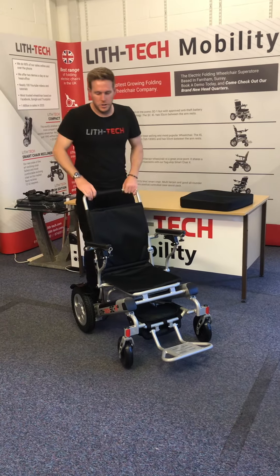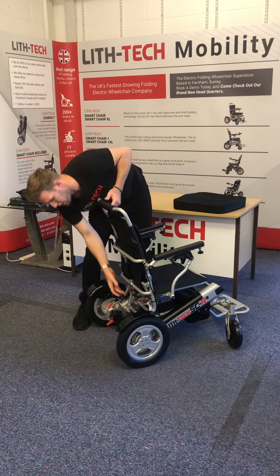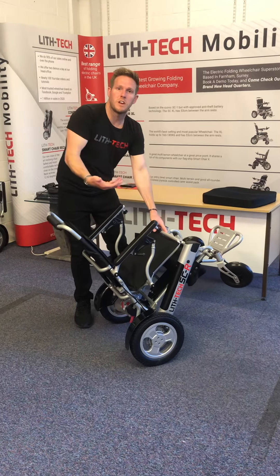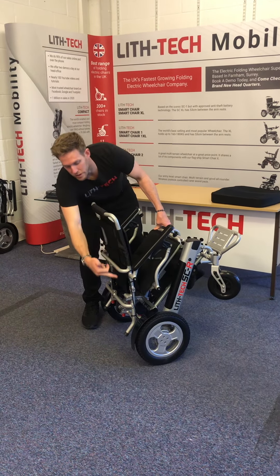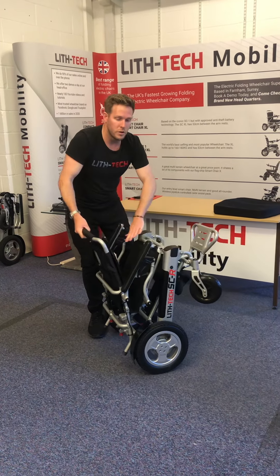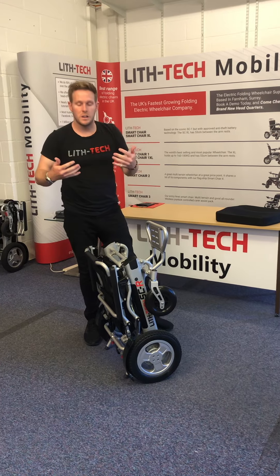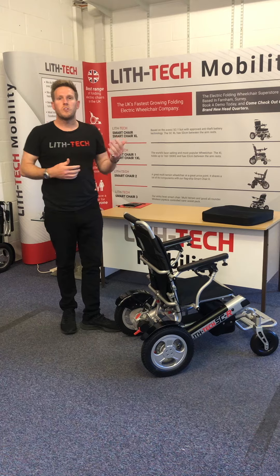Folding and unfolding this chair: first remove the cushion. I always do everything from the side because we want to use the back wheels like a pivot. Press a little bit of pressure here — it's a self-closing chair, so when you do that it locks itself into place. Press down, put a bit of pressure on the backrest so it's no longer catching on the clip, then bring the chair up to a central position. We're bringing the gravity and the weight of the chair back so we can just bring our hands together nice and easy. To unfold, think of the chair in two separate halves: the backrest is one half and the rest of the chair is the other. Lean it forward and gravity will start undoing it — just give it a little helping hand and the chair locks into place. You can also fold it using an inverted grip and throw your hands forward like a pram or pushchair and it will do itself.